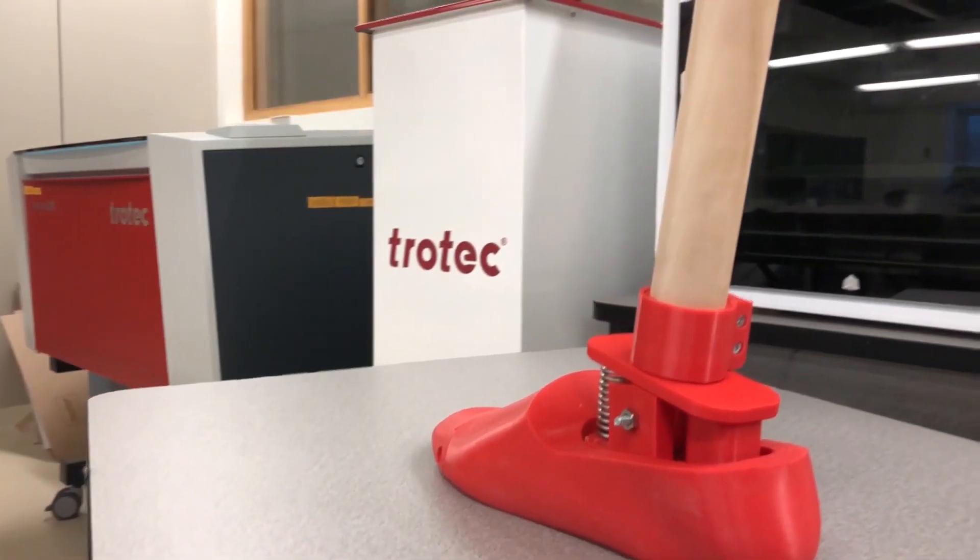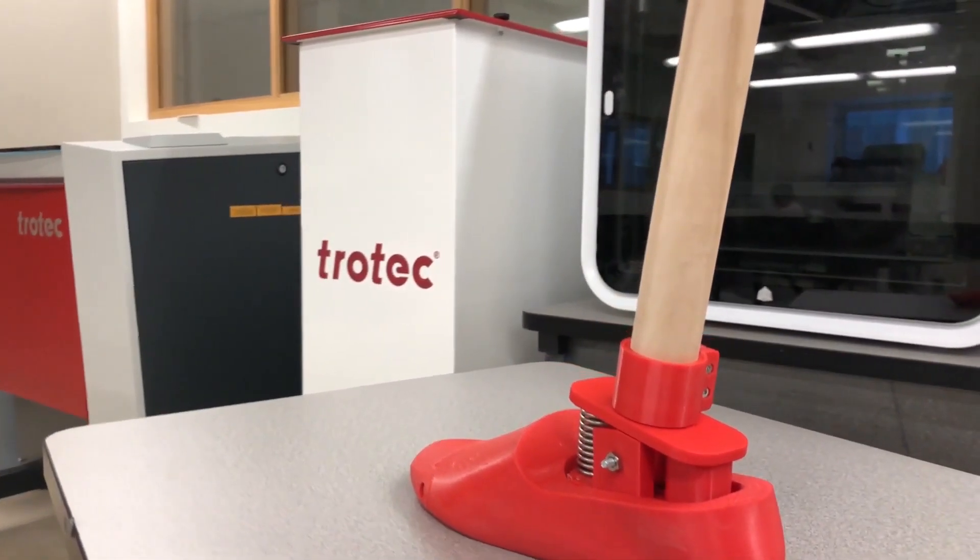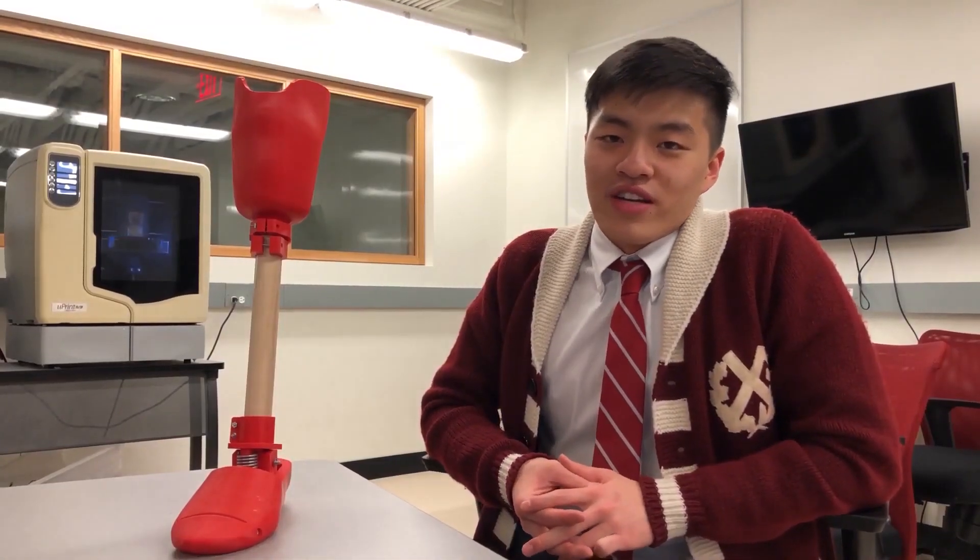For added strength, essential moving parts of the prosthetic will be replaced with aluminum to ensure the safety and longevity of the product.